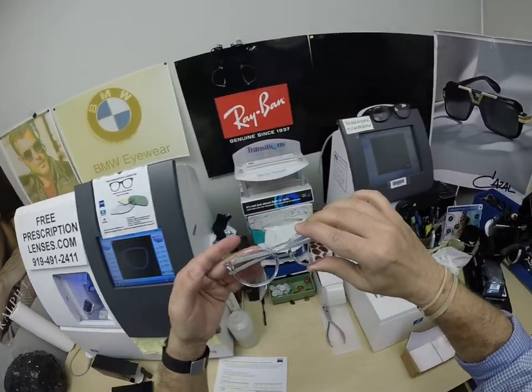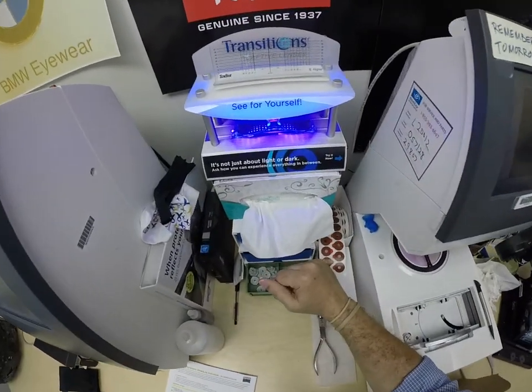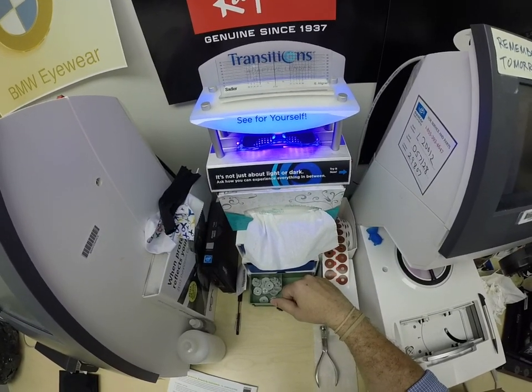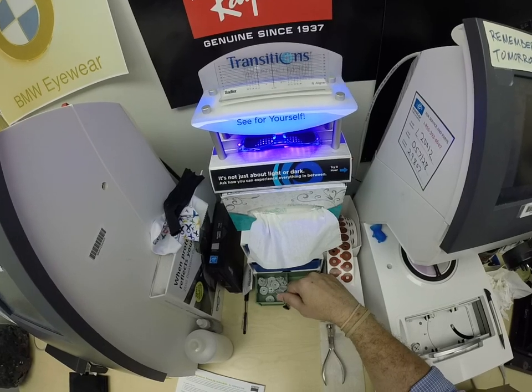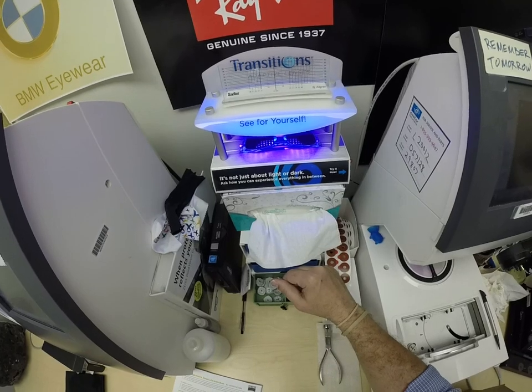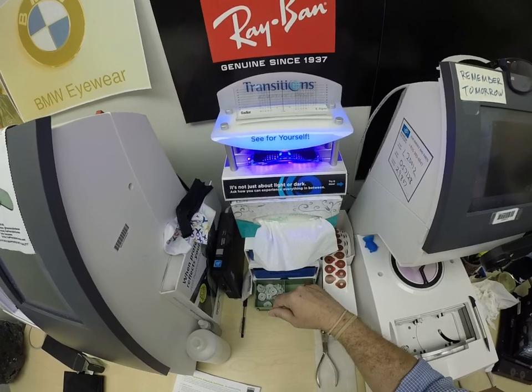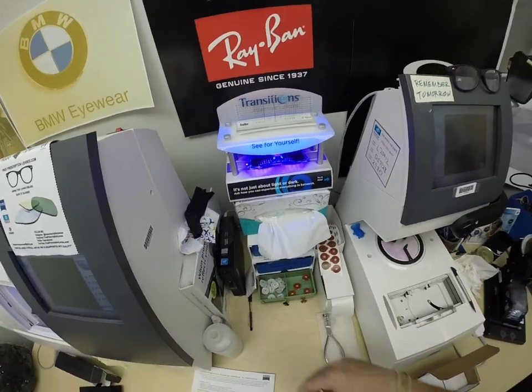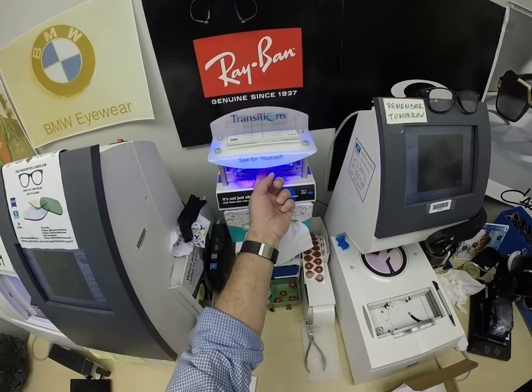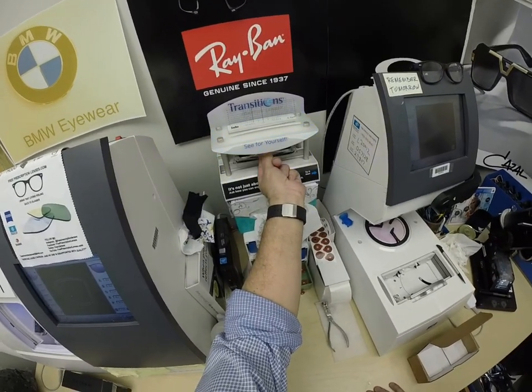This is what it looks like clear. Let me go ahead and activate them — I'm going to give them a strong burst of ultraviolet light. As you can see, it takes about 30 to 45 seconds for the lenses to darken, a little bit longer when you come back inside — 45 seconds to a minute, maybe a minute 15. All photochromic lenses will turn dark on day one and continue to darken every day for the first couple of weeks of sun exposure. After that they will work for years at maximum performance. The only time they won't work is if you're behind the windshield of a car — your windshield absorbs the sun's harmful ultraviolet rays, and that's why they don't turn dark in a car.